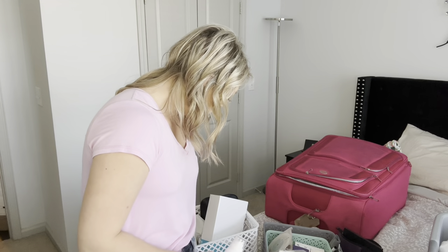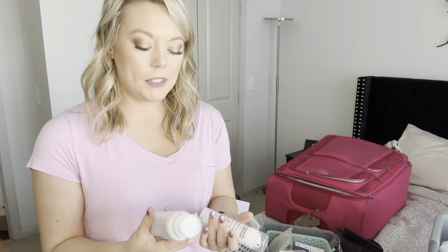If you are flying, you can totally take your ostomy supplies through TSA. The first time I flew after having an ostomy I was nervous they'd take my supplies away, but they don't. I did get flagged a couple of times — they see the ostomy bag on the screen, so I had to show them what it was and run my fingers over it. They tested my fingers, probably for drugs, but after that I haven't been stopped.